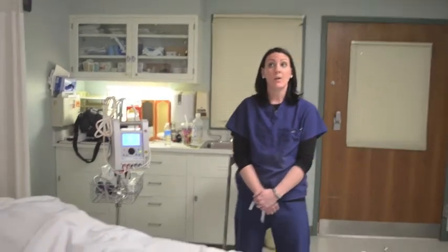In summary, pneumatic tourniquets allow for a bloodless field during surgery, but may contribute to undesired, unintended complications. Each patient must be individually assessed prior to the application of a tourniquet. The patient's age, size, and physical and medical conditions determine the outcome for the use of this medical device. Patient safety is always number 1.